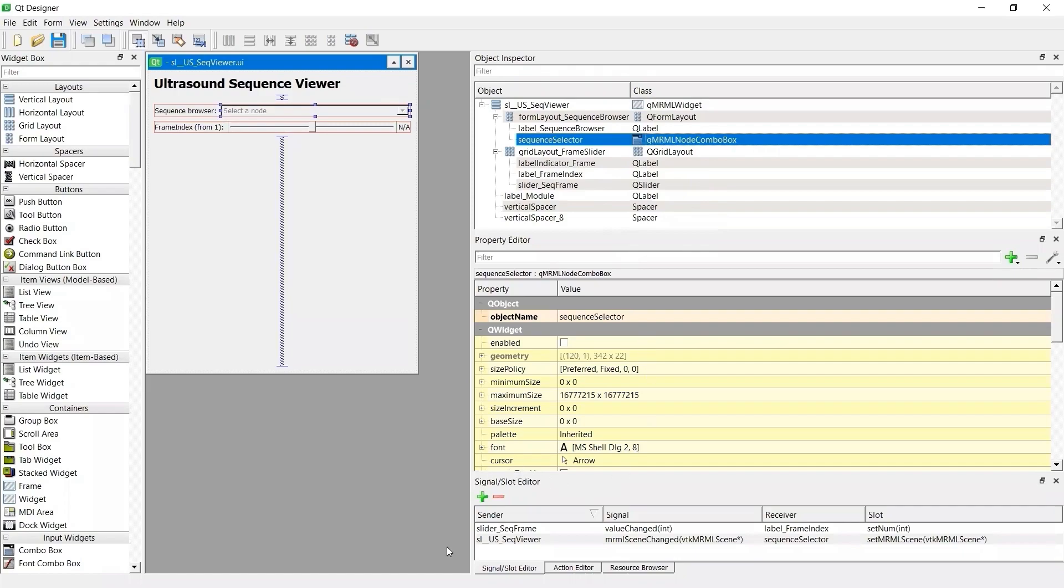There is one important thing to be noted, which is the signal slot editor. Yes, we can connect the signal slot in the Qt designer when editing the graphical user interface.